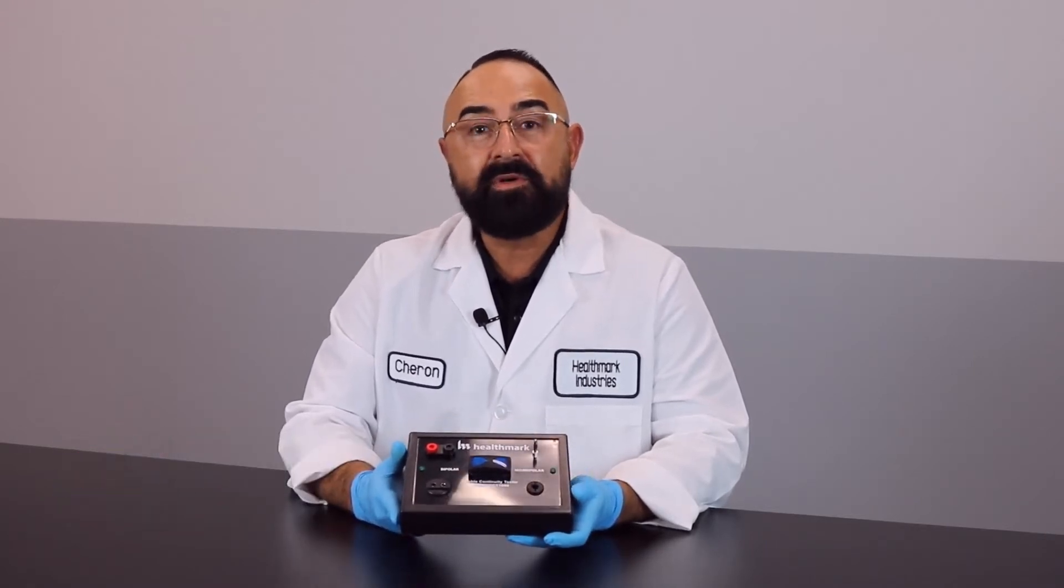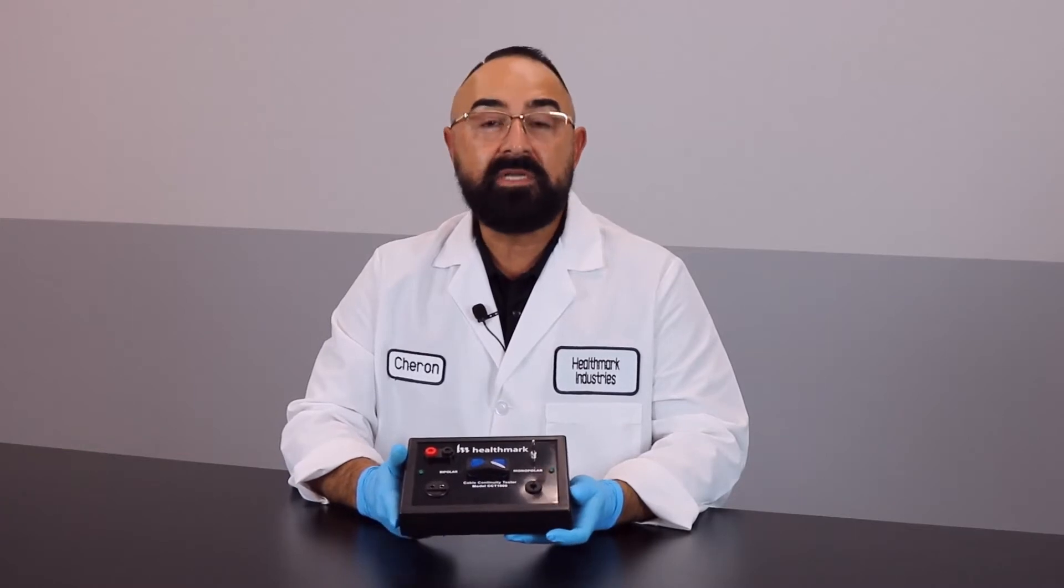Today we're going to show you how to use the continuity tester and adapters used to test the internal conductors of your reusable bipolar and monopolar cables and cords.